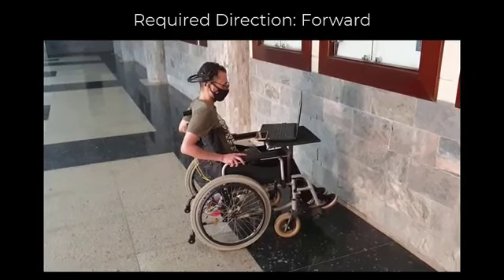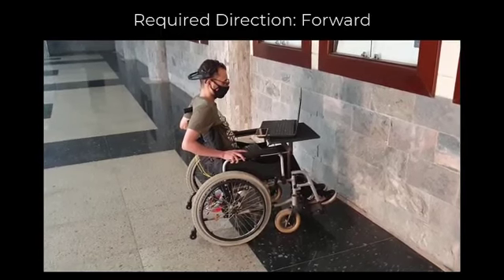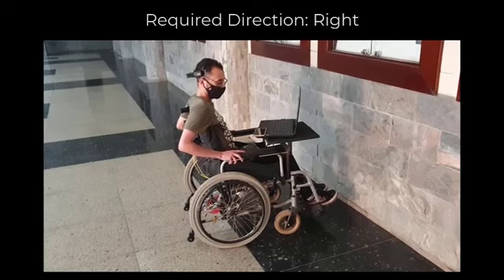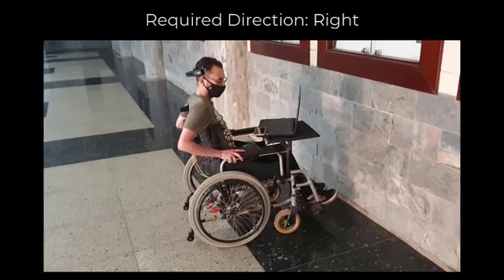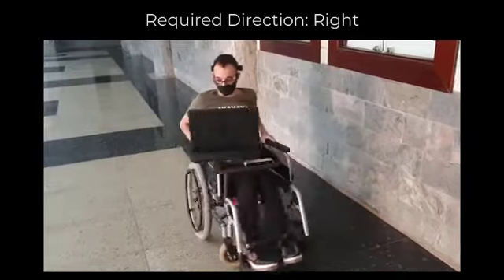However, the wheelchair doesn't have to wait for the object to move away to continue listening to instructions. When the user changes his command to a right command, the wheelchair can execute it because it will not cause a collision.